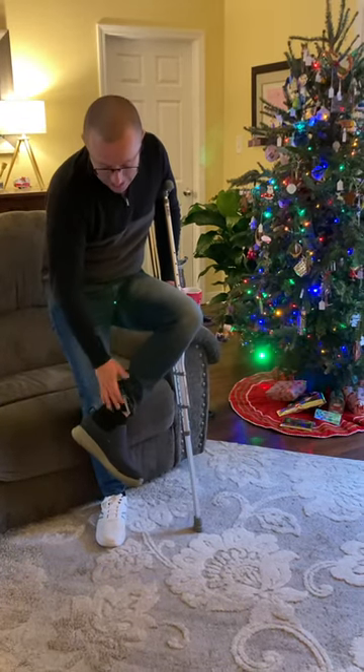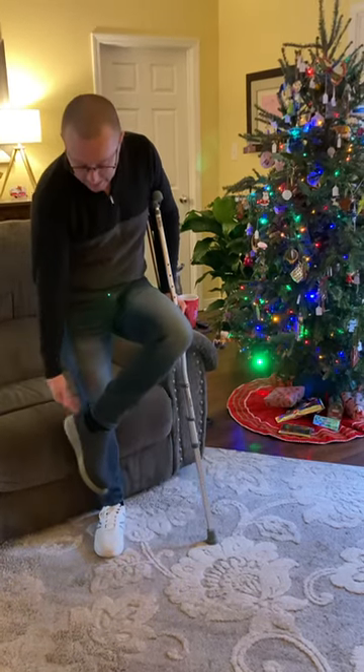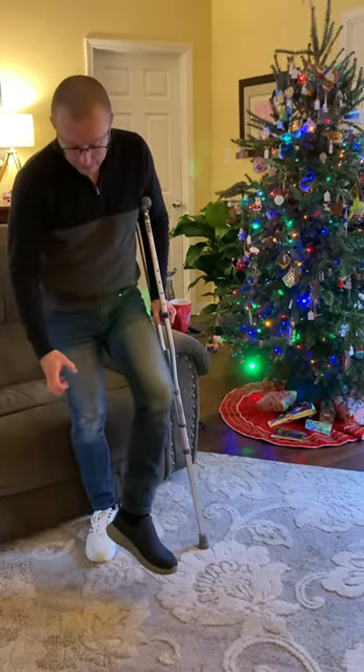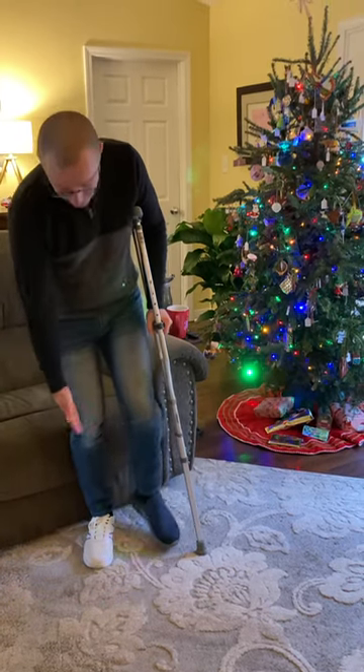This is actually — I've got a brace on in here and this shoe fits. And a slip on. It's bigger for me and it's got my memory foam in it. So I'm starting to put pressure on it. And this is a regular shoe that'll help me not skid.